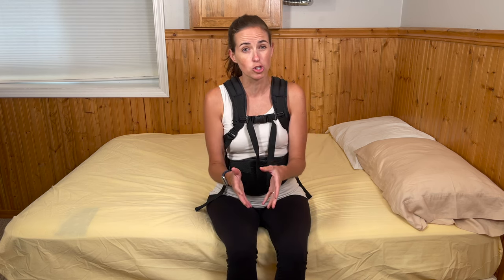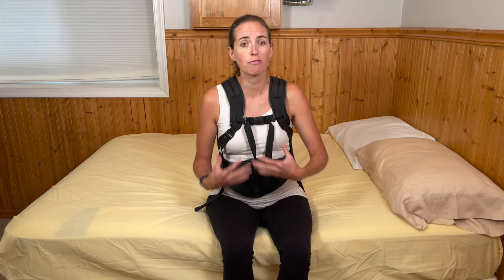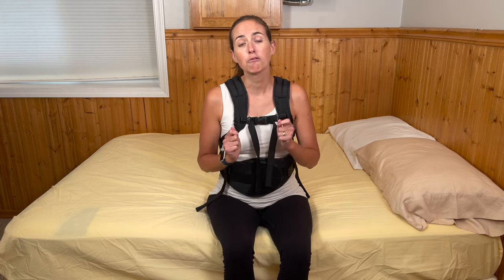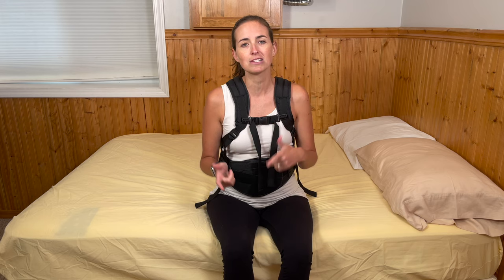My goal of this video is to explain how to take the brace off safely and how to put it back on from a seated position. It's very important that you know your specific restrictions following your back injury or surgery, as they're all going to be based on what your surgeon has cleared for you to do. Another thing you want to make sure you know is what your brace looks like when it is on correctly. When you have your brace fitted by the professionals — your rehab team, surgical team, or whoever puts it on for the first time — take photos. It's a really good idea to have photos on your phone to reference the lengths of the straps and how it looks on your body front and back, so when you take it off and put it back on you have a reference point.